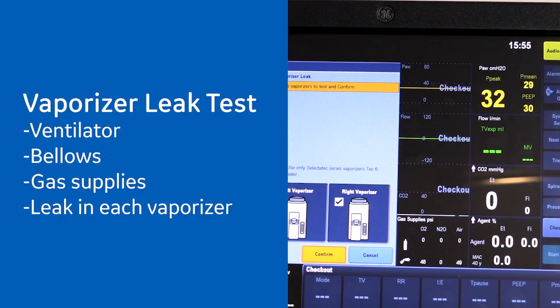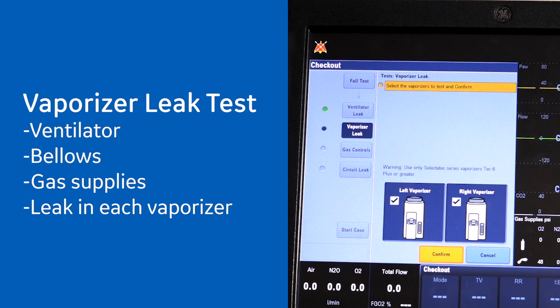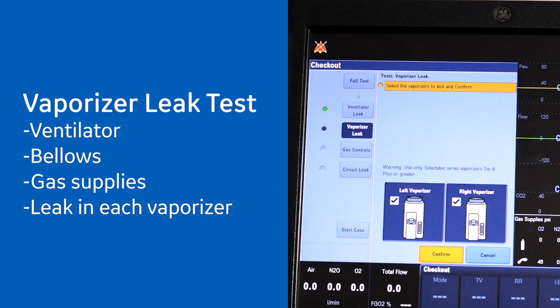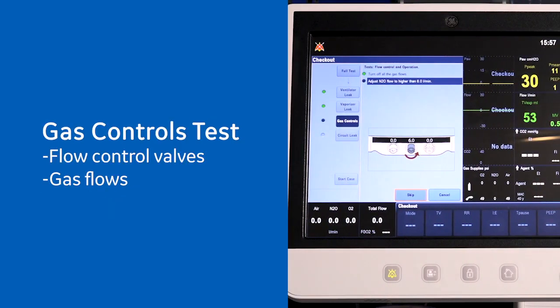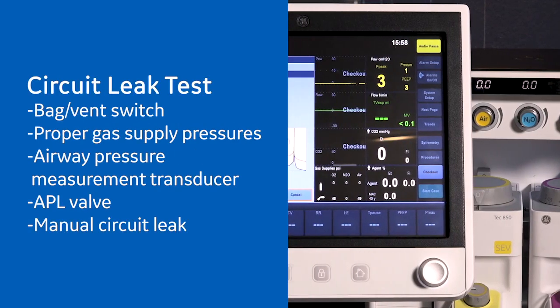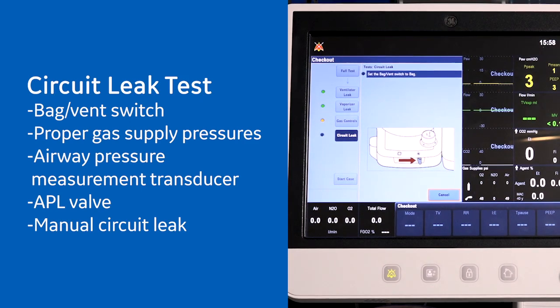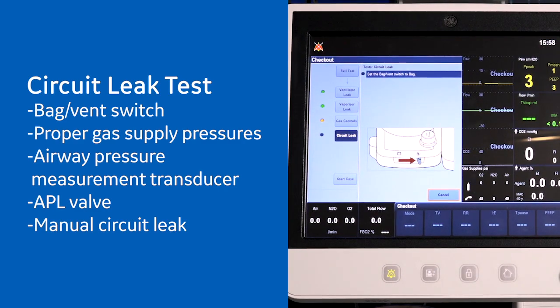The vaporizer leak test is a two-step check. The test first checks the ventilator, bellows, and gas supplies, and then checks the leaks in each vaporizer. The gas controls test checks the flow control valves and gas flows. The circuit leak test checks the bag to vent switch, proper gas supply pressures, airway pressure measurement transducer, APL valve, and manual circuit leak.